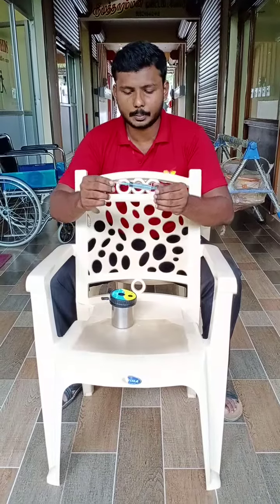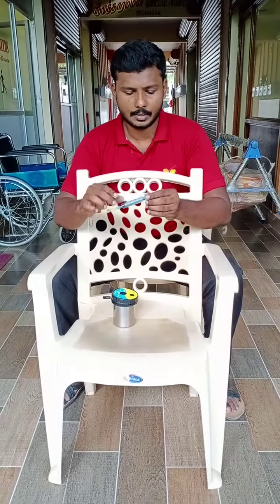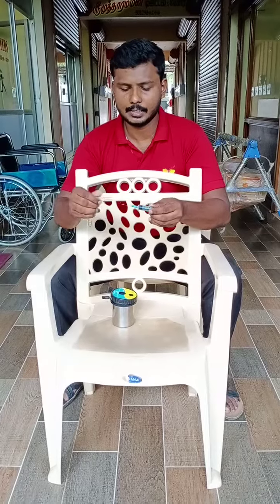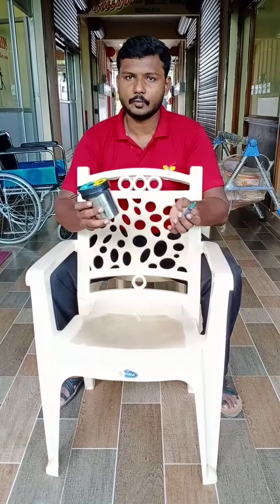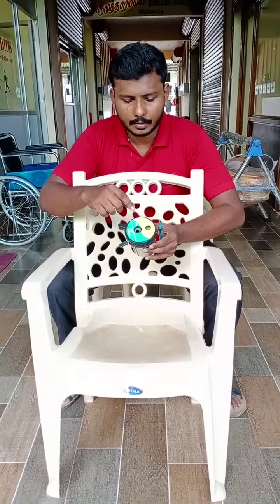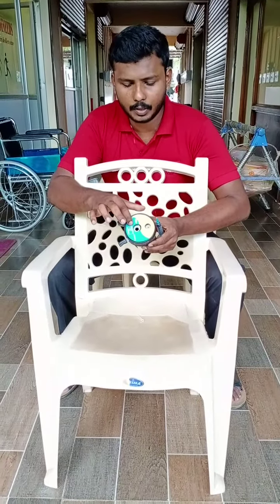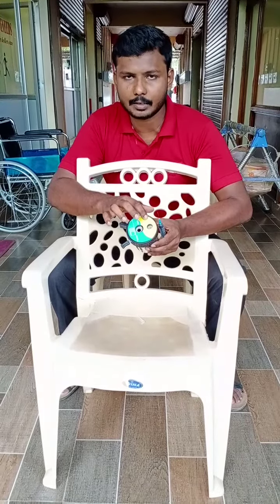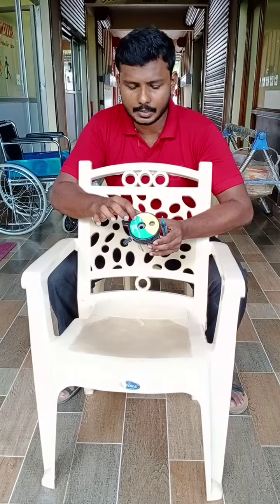I'd like to tell you the parts of the syringe: this is the plunger, this is the barrel, and here is the needle. We are using this needle cutter to dispose of these parts in a safe way. In this part you have two holes — one is the needle cutter hole and the other is the barrel cutter.